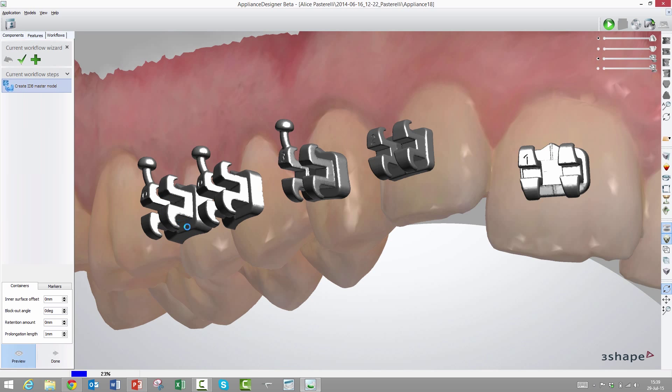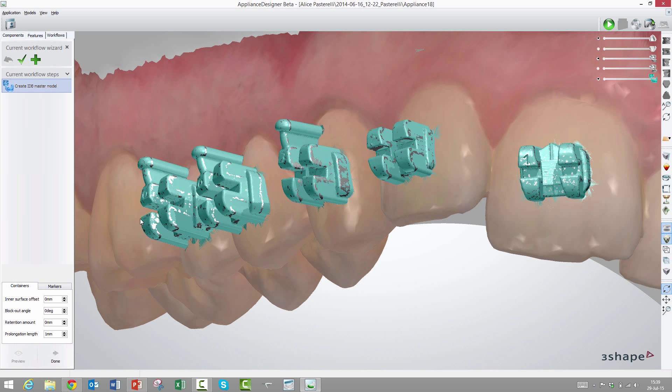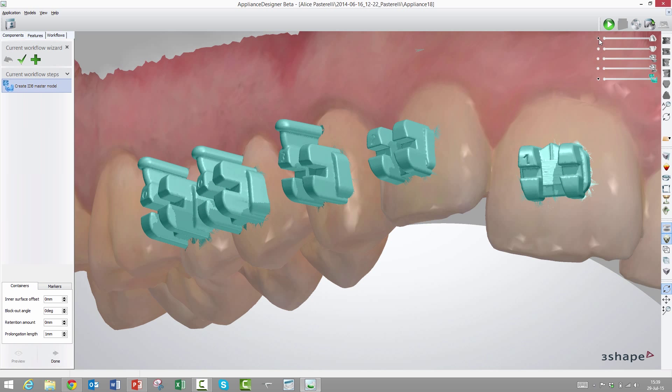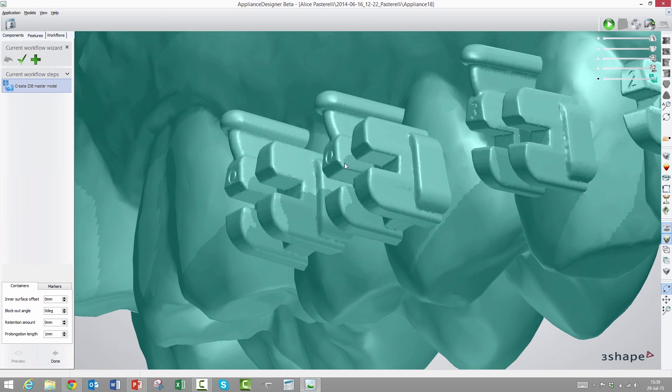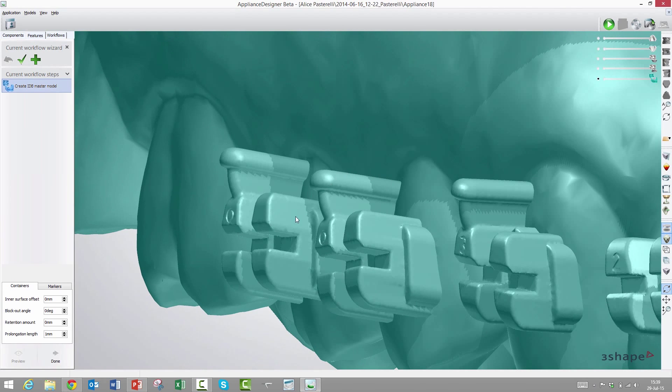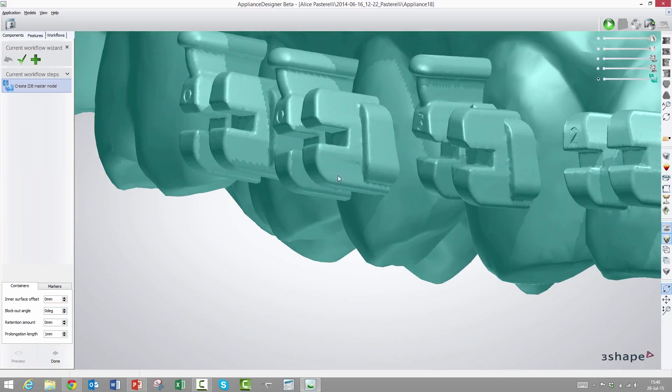A container is a bracket representation with one noticeable difference: all the undercuts are removed in relation to the insert direction of the bracket into the vacuum form transfer tray. If we look at this bracket, the cavities here under the wings, material will fill that out, and the same with the hook. Inner surface offset will make it either too big or too small. It's done with the calculation, so maybe it's more evident what I meant.